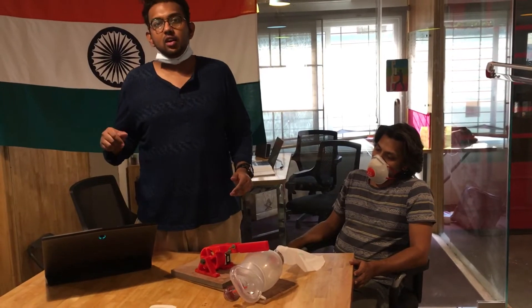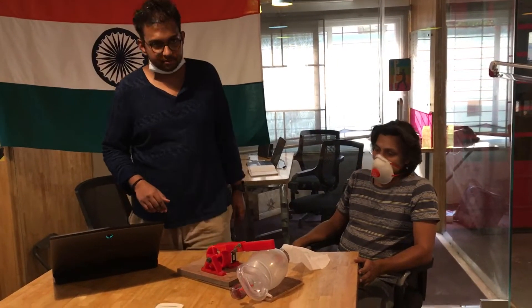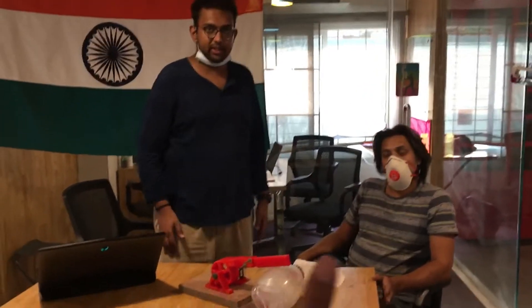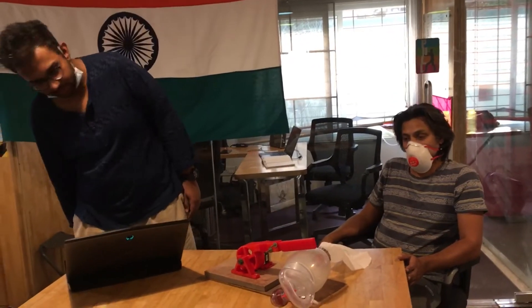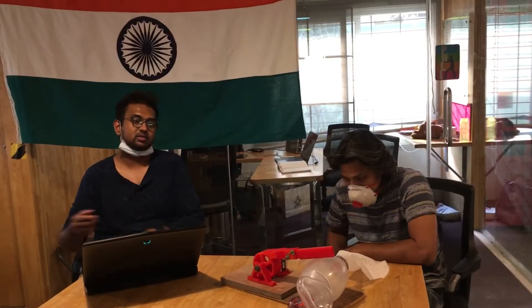When asked how many days it will take, the answer is about 3 to 4 days. This is the first prototype — once the electronics come in we'll have the second prototype, then a third and fourth, and then the final ready-to-produce version.